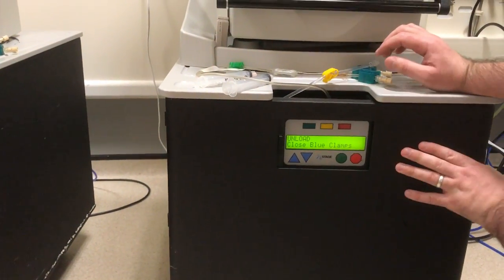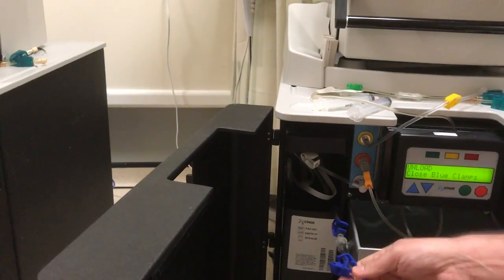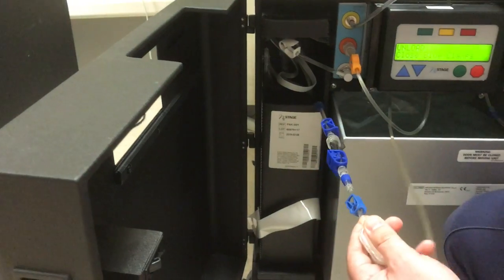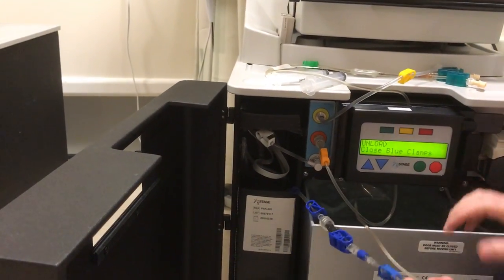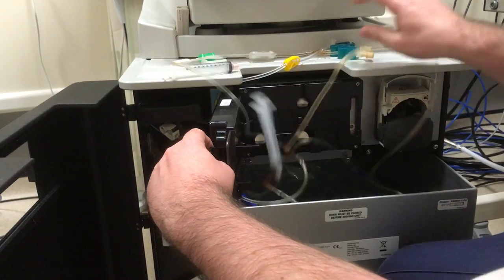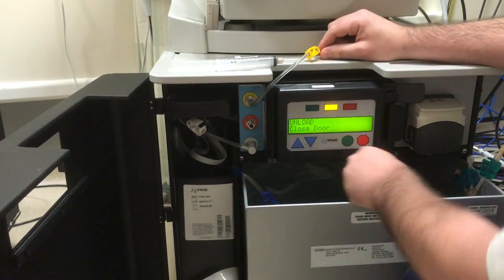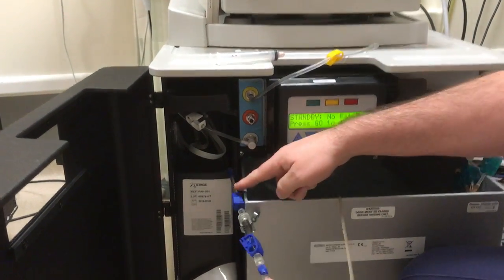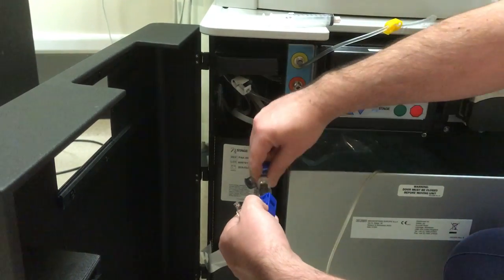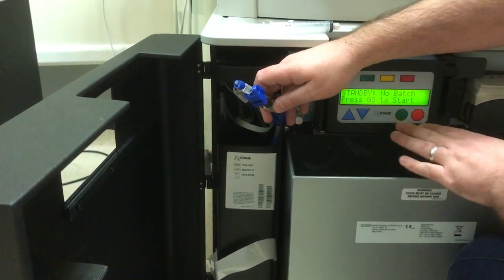As you can see now, the machine is telling us to close the blue clamps. So we're going to clamp here, here, and here, and tell the machine that we've done that. Then it's going to want us to open the door and remove the sack. So we open the door, pull up the handle, take all of that out, close the door, and take the orange line out. For the blue line, we remove the bottom one but always leave the non-return bit attached — that keeps this part of the line clean, as it's coming from the purification unit. Then this sack will be removed and we'll put a new one in.